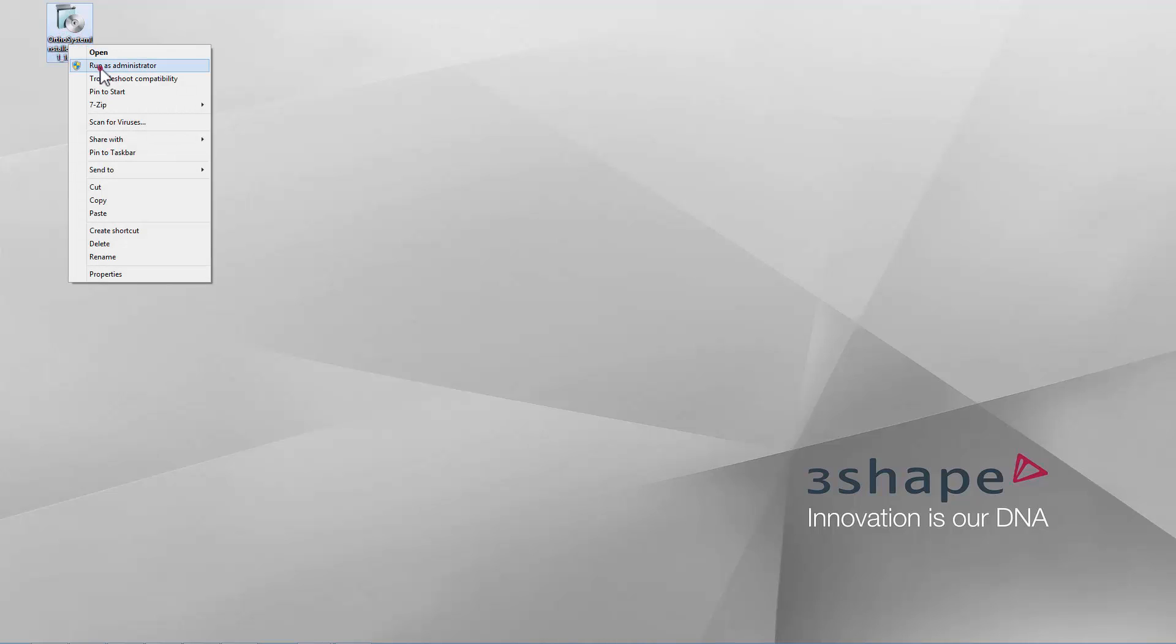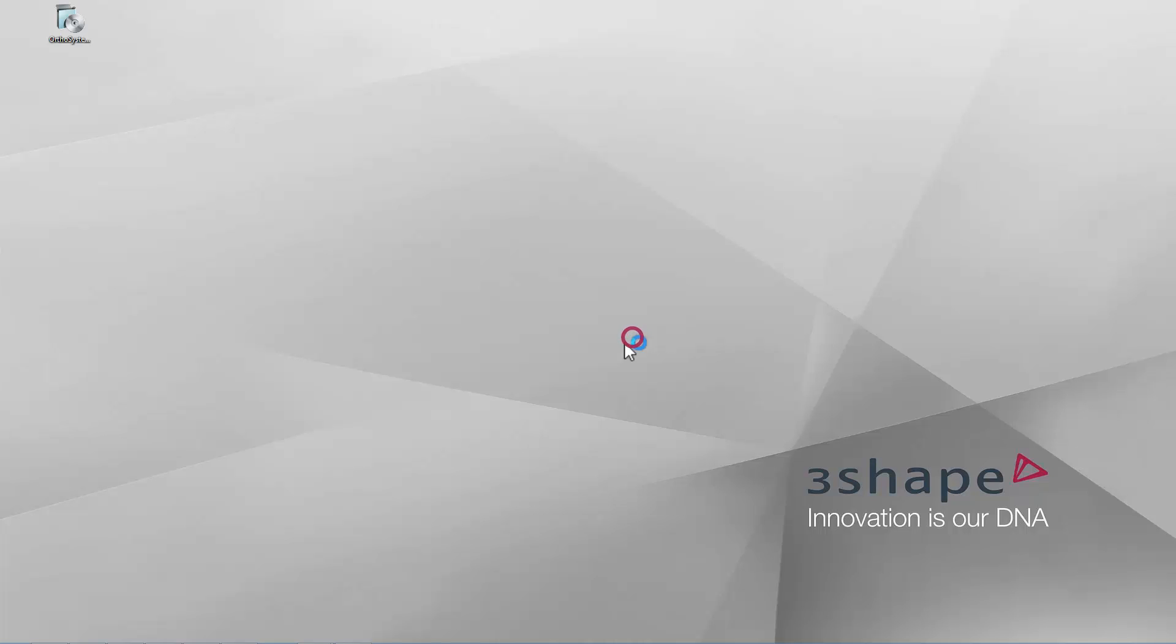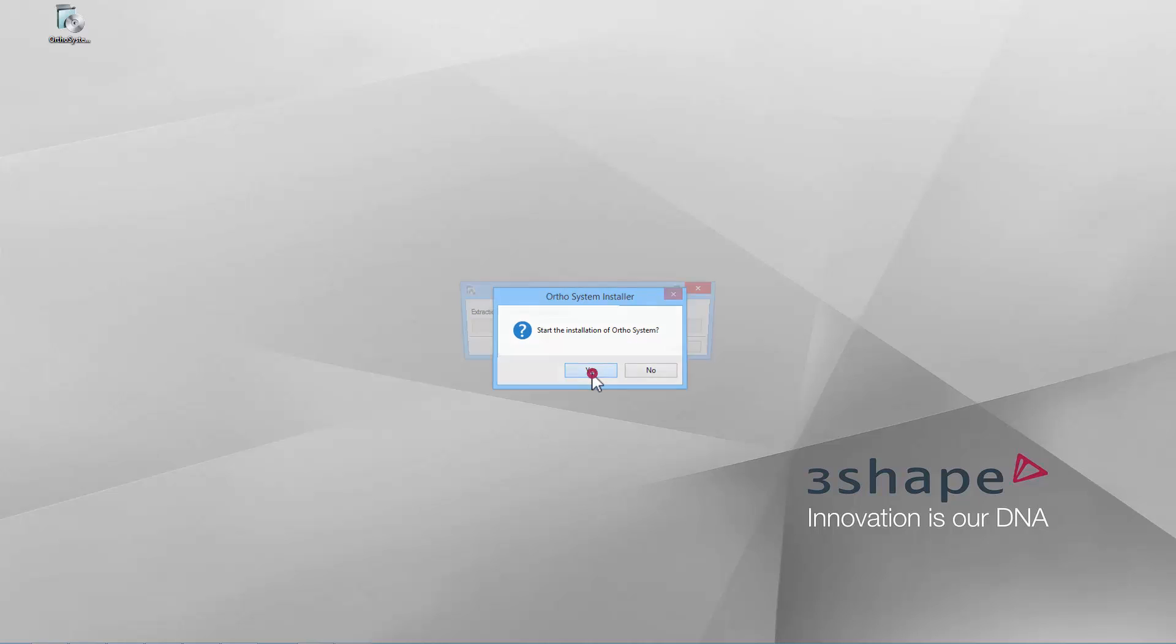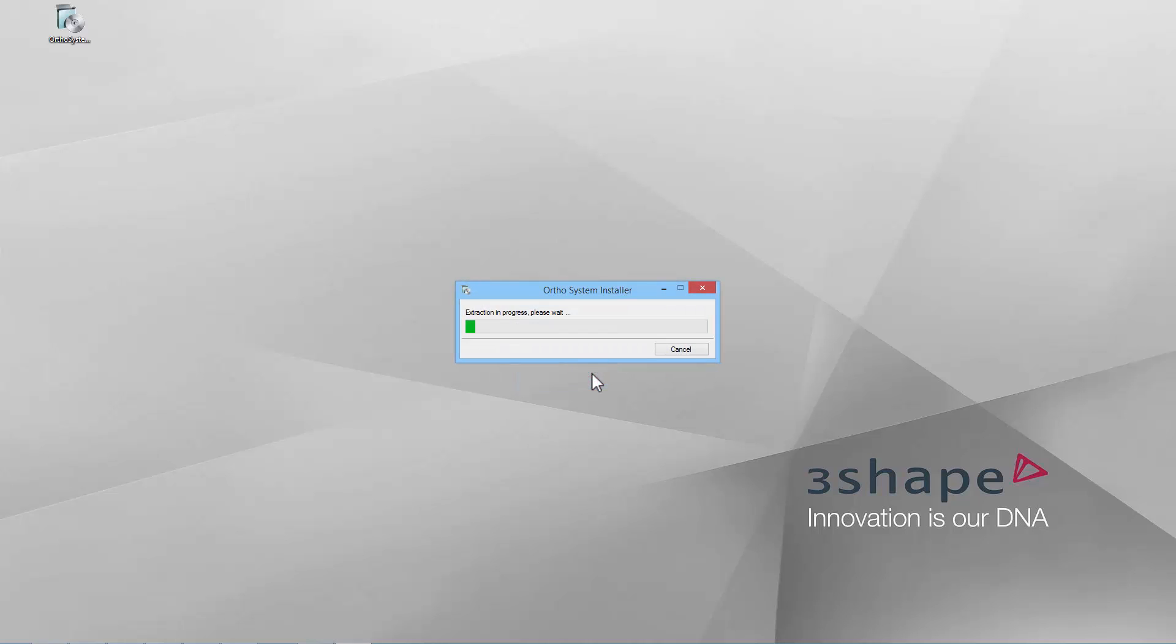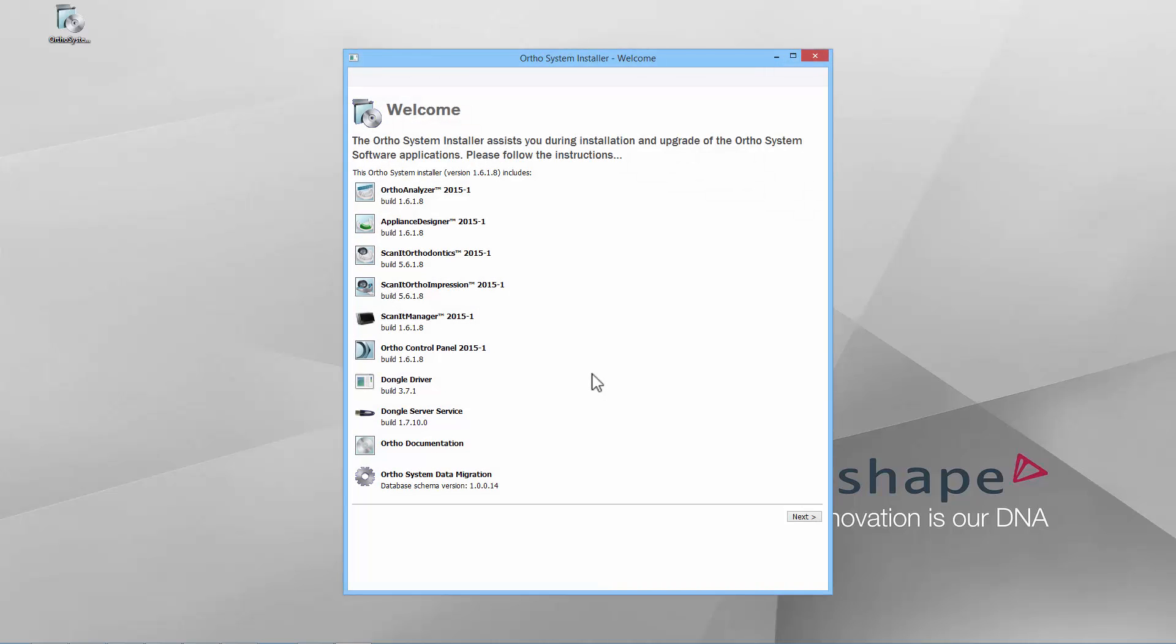Right-click on the installer file. In the pop-up window, click Yes to allow the application to make changes on your PC. Click Yes to proceed with the installation. It will start automatically and requires only a few clicks to complete. The installation wizard will open.